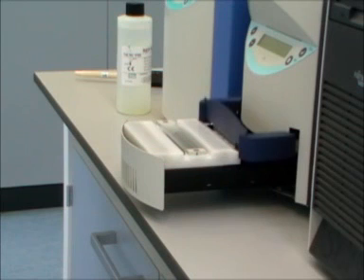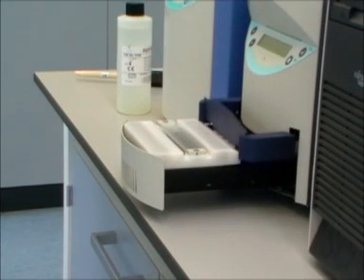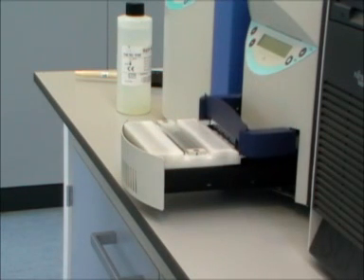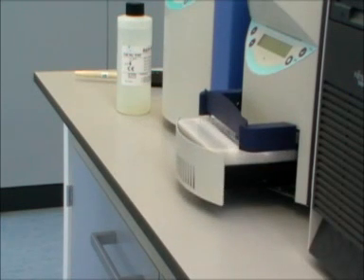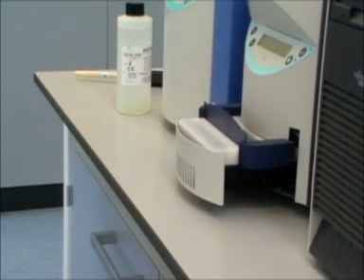The process from here is automated after programming the unit appropriately. Once the program is started, the sample comb loads with the samples and then moves to apply the samples to the correct point on the gel.